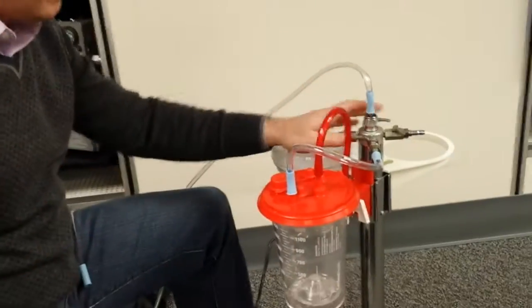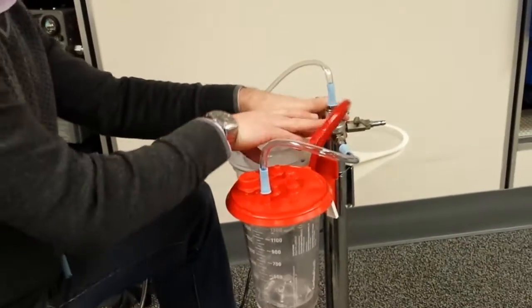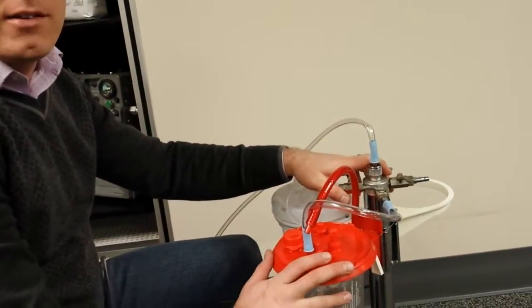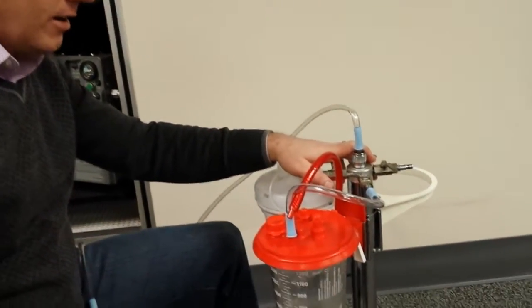Okay, so we're explaining the use of our canister holder, our canister stand, and hooking up canisters in tandem.